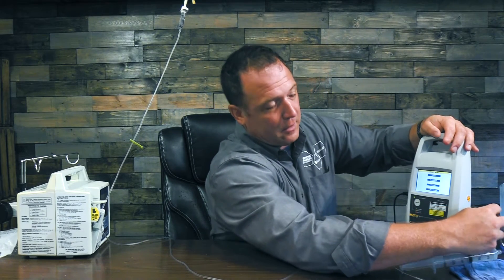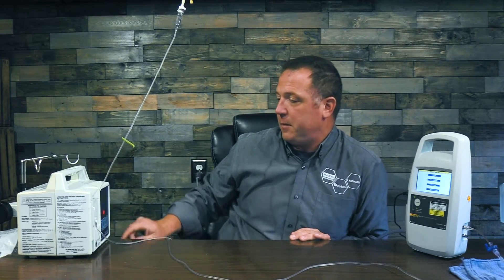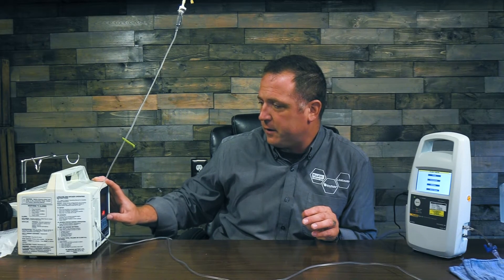I'm going to shut off my stopcock so I don't have any fluid come out, and move my stopcock to the upper port for occlusion. I'll disconnect my priming tube, move my valve over to the priming tube to shut that off, close this so it stops alarming, and reset. I'd reference my service manual, but since I'm just picking an arbitrary number, I'm going to drop my rate way down — to 30 milliliters an hour — and hit enter, and we'll pick a volume of 20 milliliters.